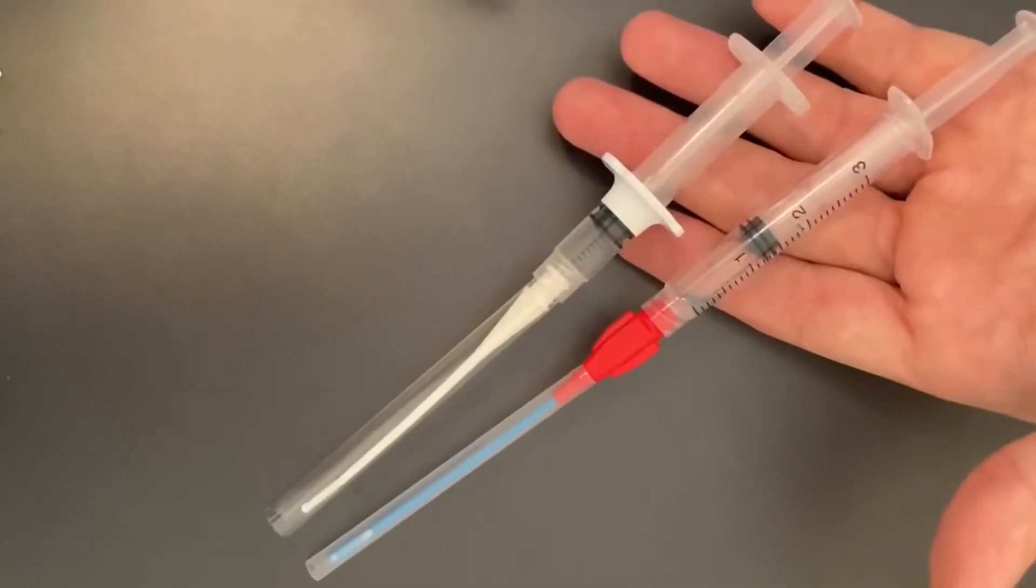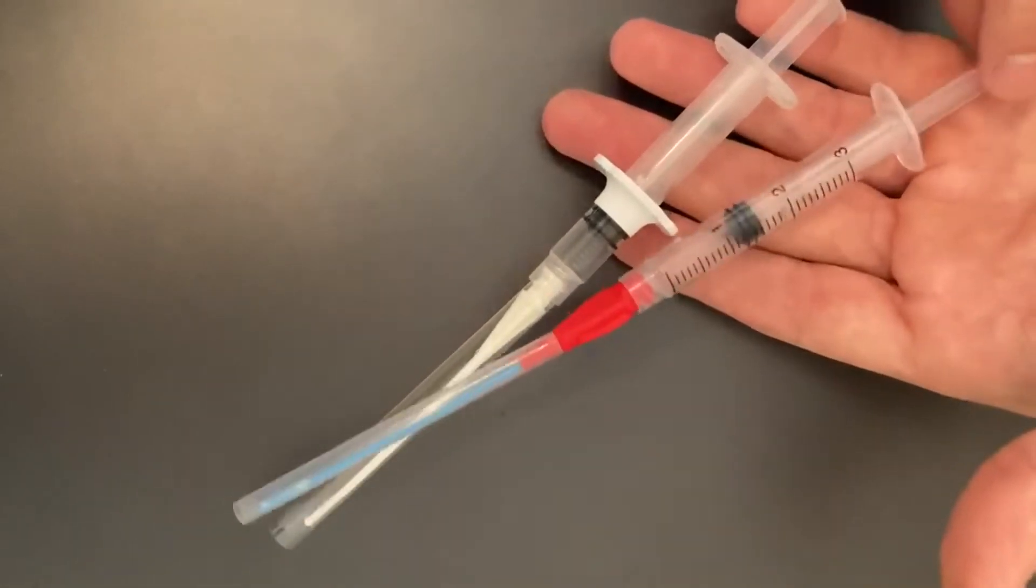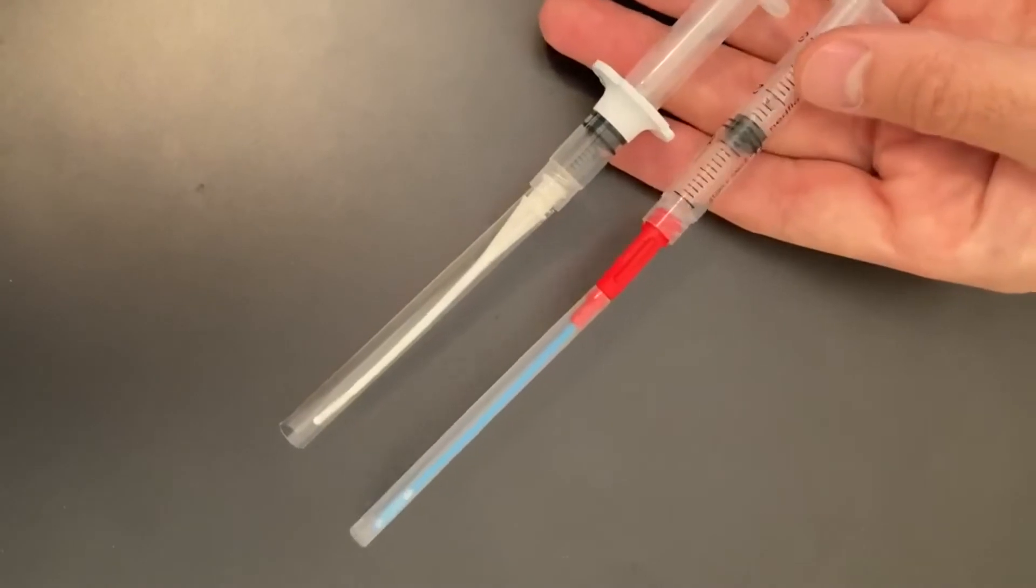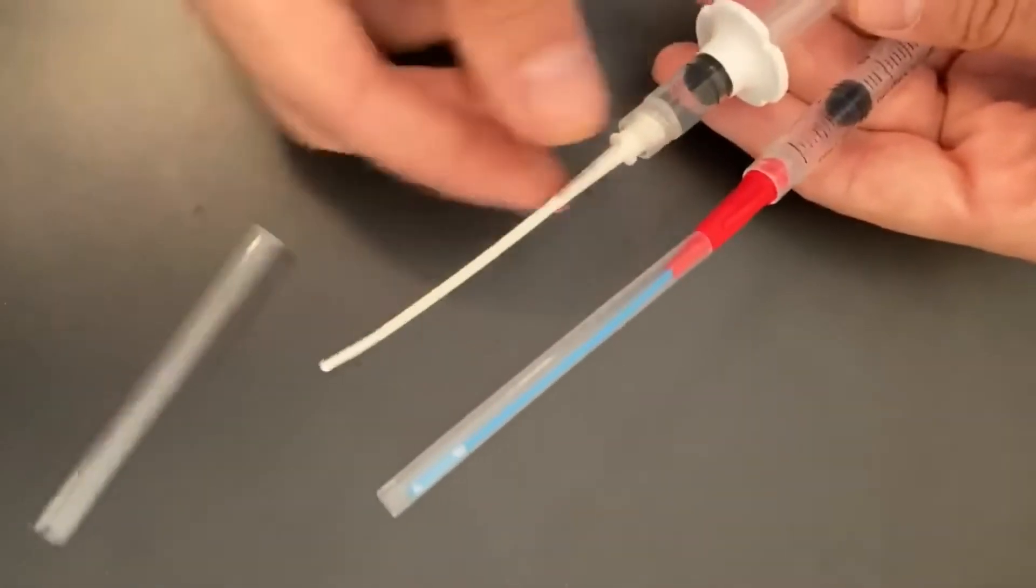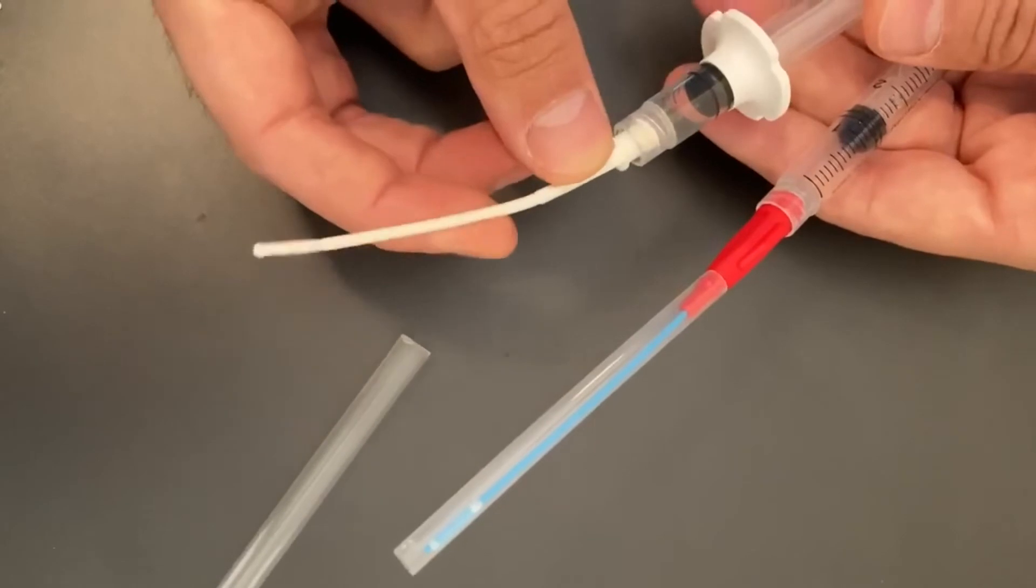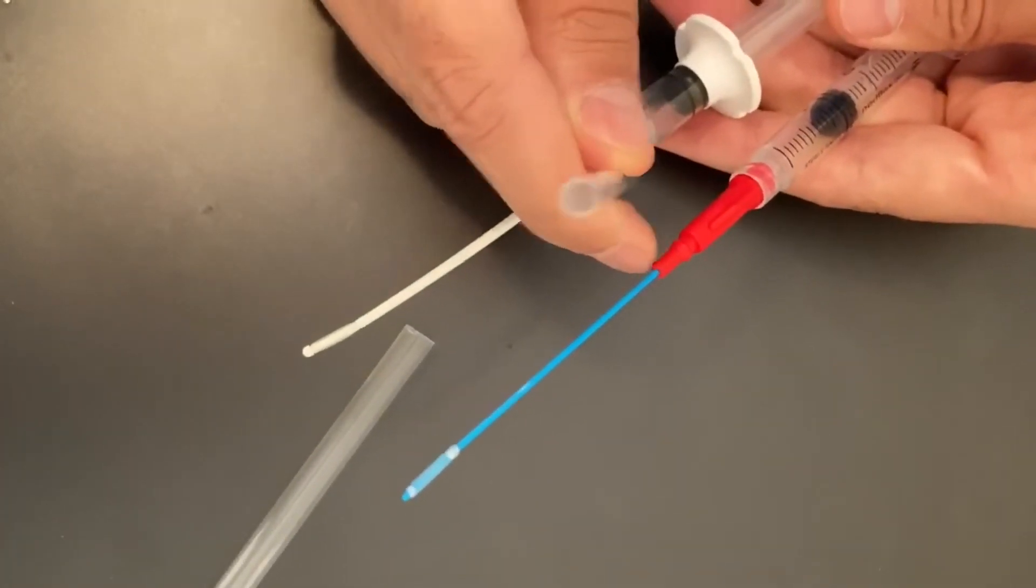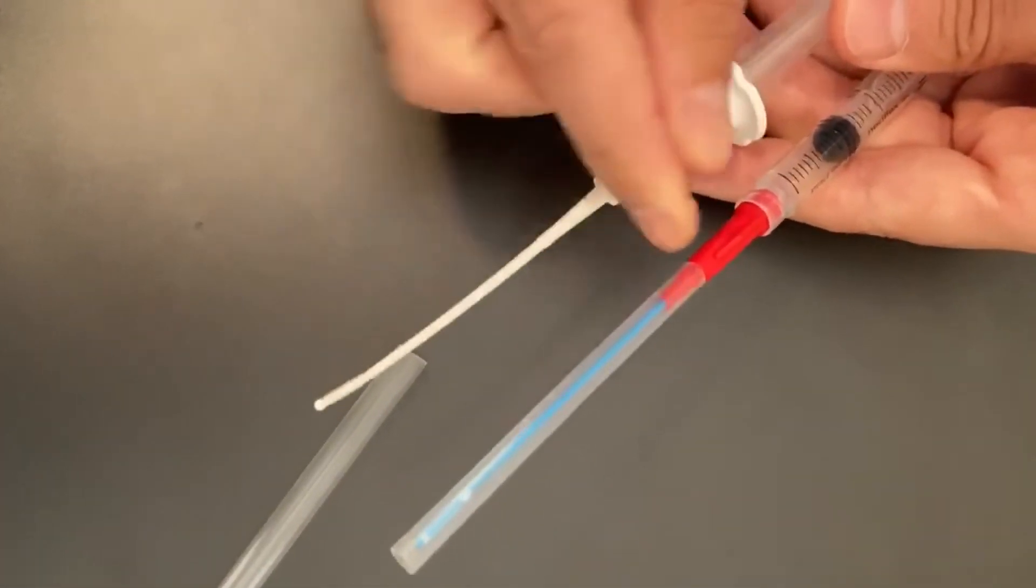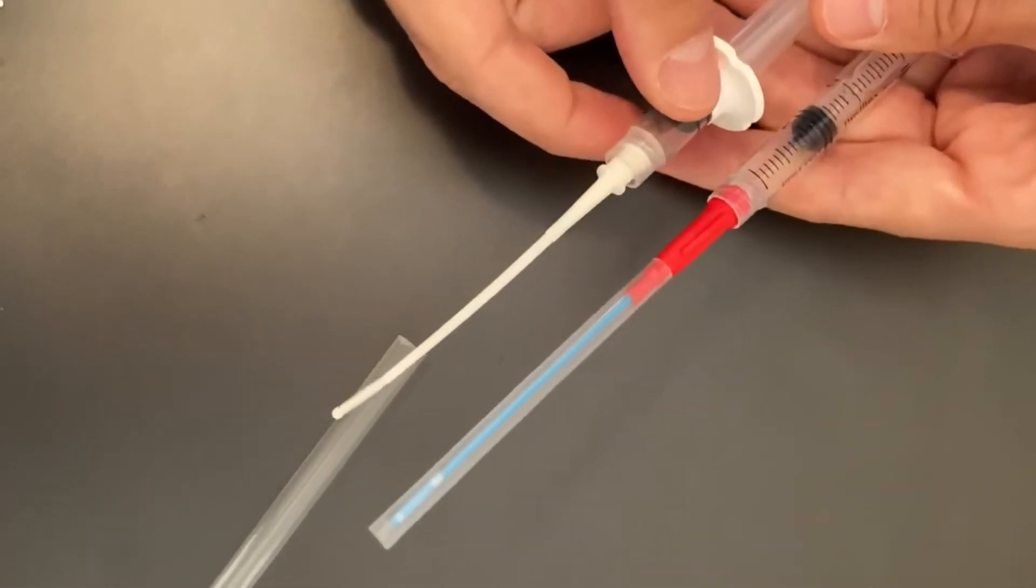The remaining features are probably not as critical but our new color should make sure there's no confusion about which device you're using. Their catheter and hub is now a single piece which keeps the shaft from kinking in the package. Our catheter is glued to the hub but the new hub has a nice shape to ensure the plastic cover keeps it protected in the package.